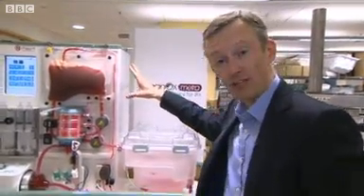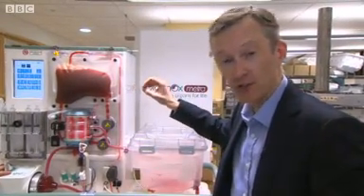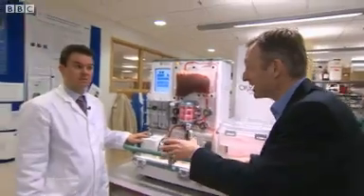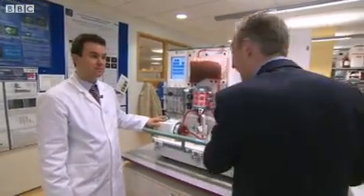I'm at the University of Oxford and here is one of these liver perfusion units, which has been used now for the first time to transplant a liver at body temperature. With me to discuss that is an engineer here, Professor Konstantin Kousios. Professor, can you simply explain how does this work?